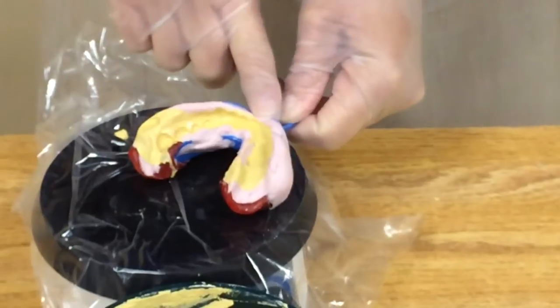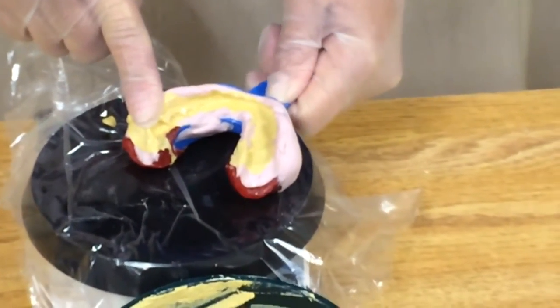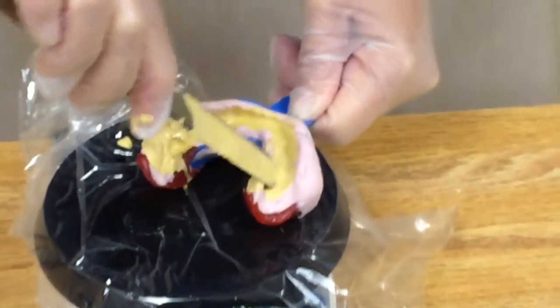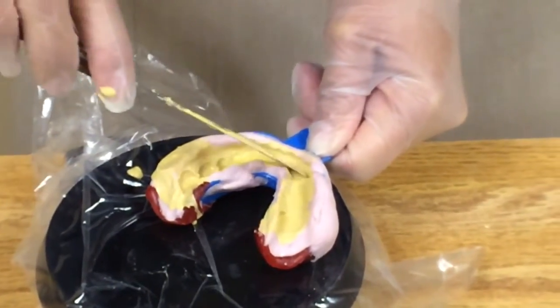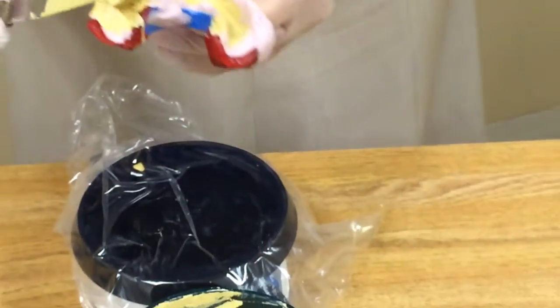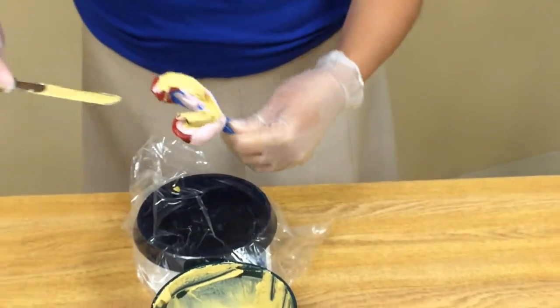I'm just going to place it down and hold it down tight with a lot of force, and just let all the bubbles come up. After this point I can go a little bit faster, so I'm going to take a little bit more material and incorporate it into that bottom layer.